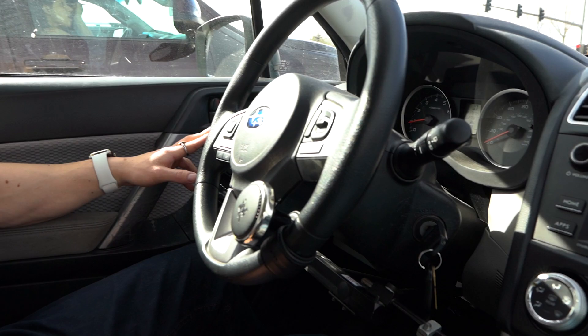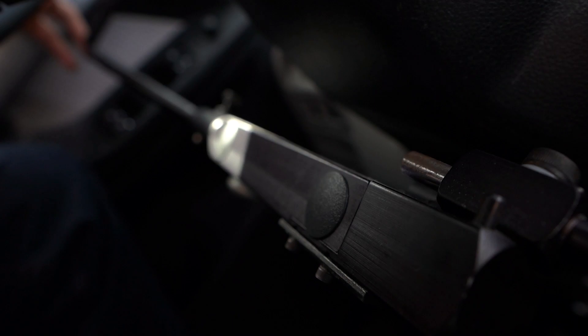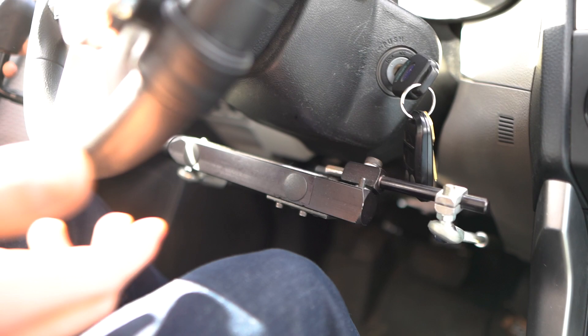It's not actually that hard to use. Some of my friends have tried it when driving my car and it's pretty easy and intuitive. The difficulty of learning hand controls is roughly the same as getting a new car — like going from a Ford Taurus to a Tesla Model S Plaid, where you have to get used to how touchy the accelerator and brake are. Some people say it's really hard, but I was comfortable within a few hours.